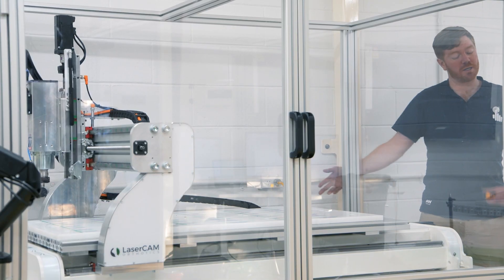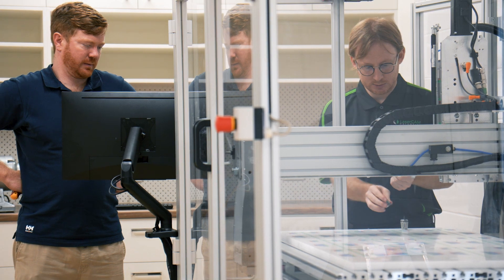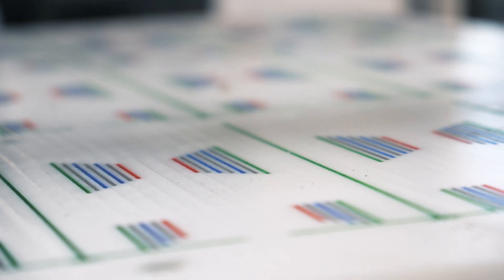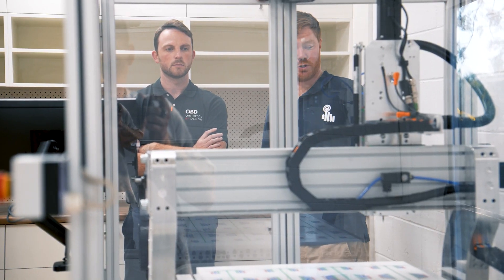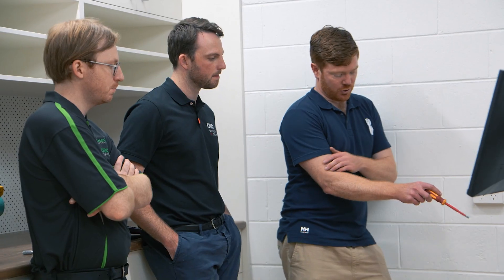This makes high-quality orthotics more available to your day-to-day podiatry clinic. Establishing OBD will allow us to provide great custom-matched orthotics to more podiatrists, which means we can get more CNC mills into more podiatry clinics around Australia for better outcomes. It's all about the patient, better outcomes, and empowering podiatrists to be better at their job and help more people around Australia.